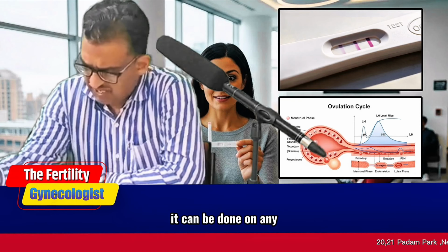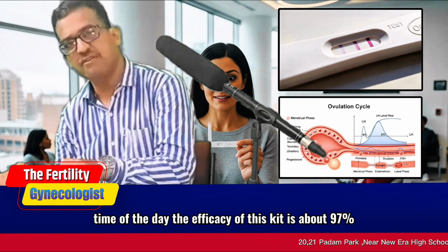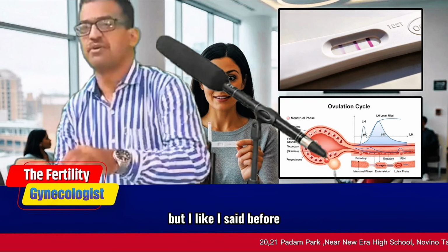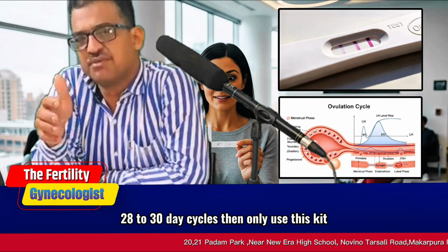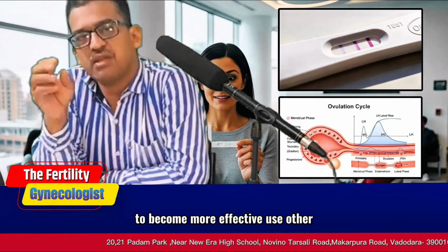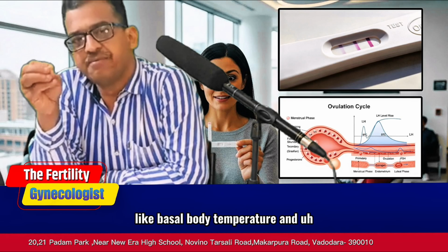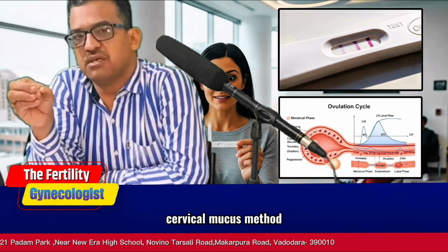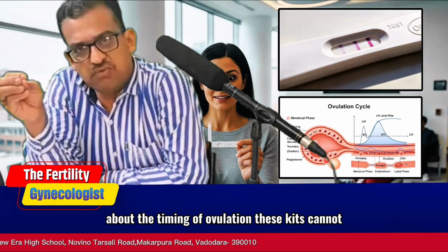It can be done at any time of the day. The efficacy of this kit is about 97%. But like I said before, if you are having very, very regular cycles, 28 to 30 day cycles, then only use this kit. To save cost and to become more effective, use other natural ovulation tracking methods like basal body temperature and the cervical mucus method, along with the ovulation predictor kit, to be more or less certain about the timing of ovulation.